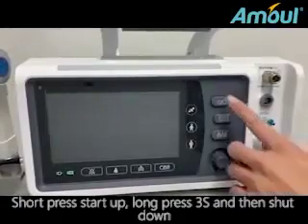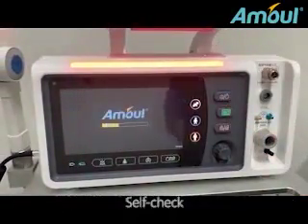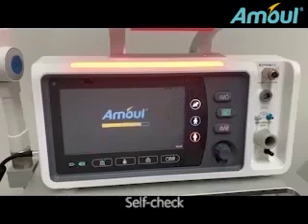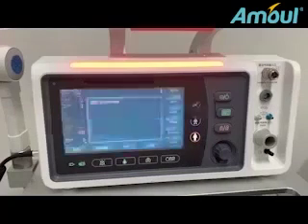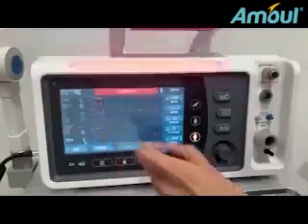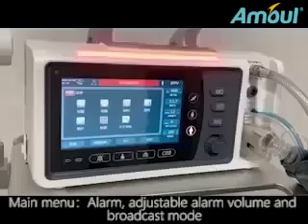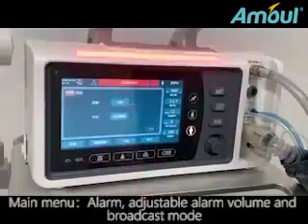Short press to start up. Long press for 3 seconds and then shut down. Self-check. Main menu. Alarm, adjustable alarm volume and broadcast mode.